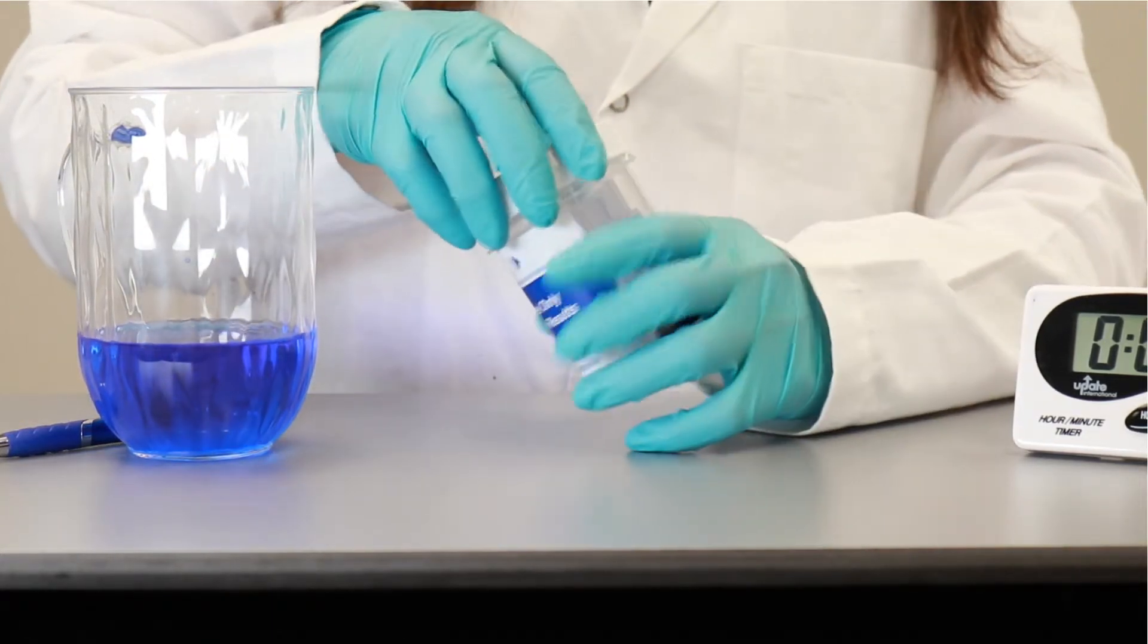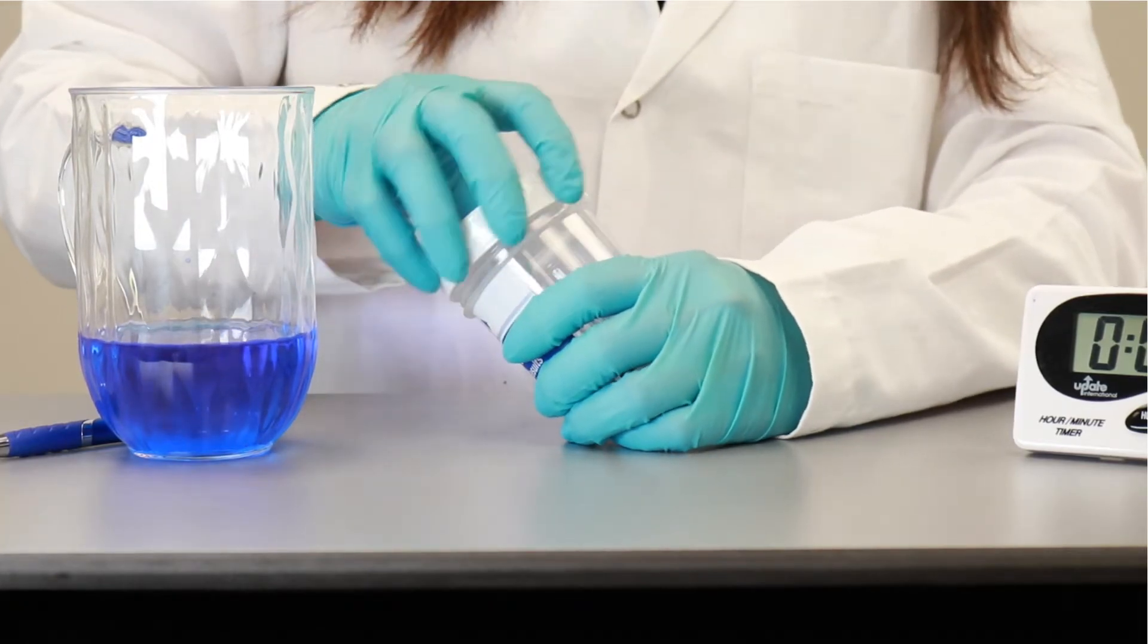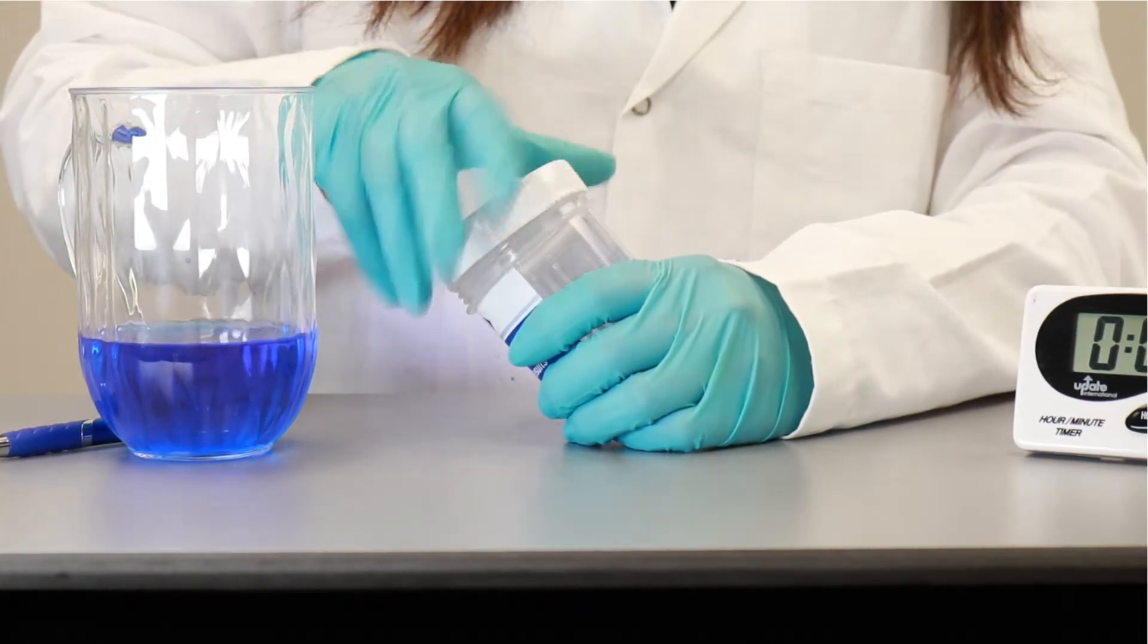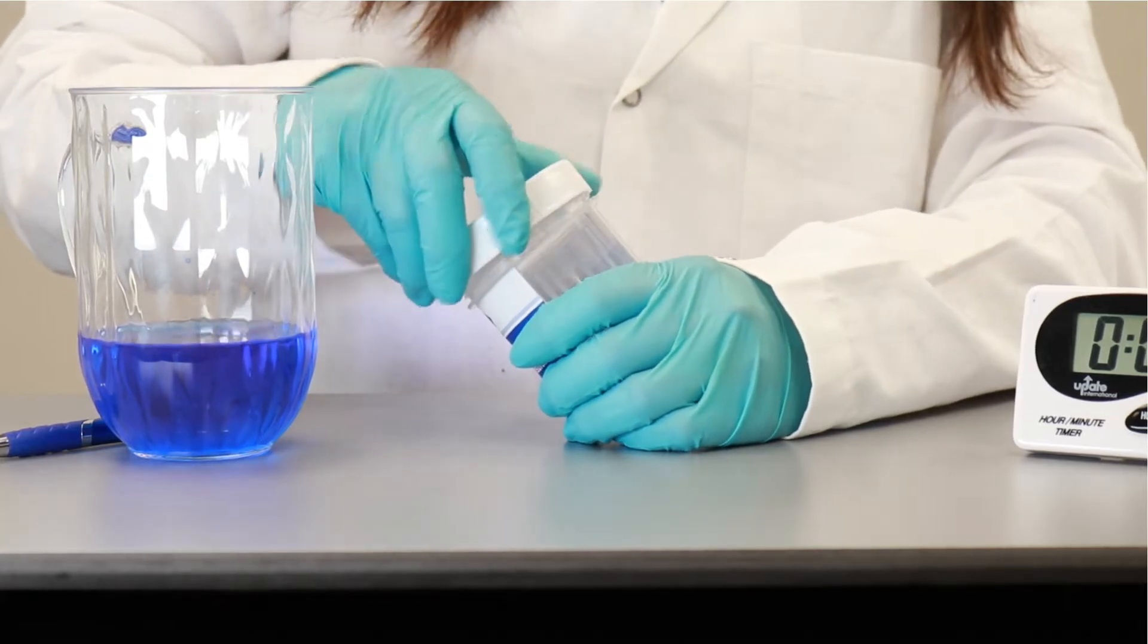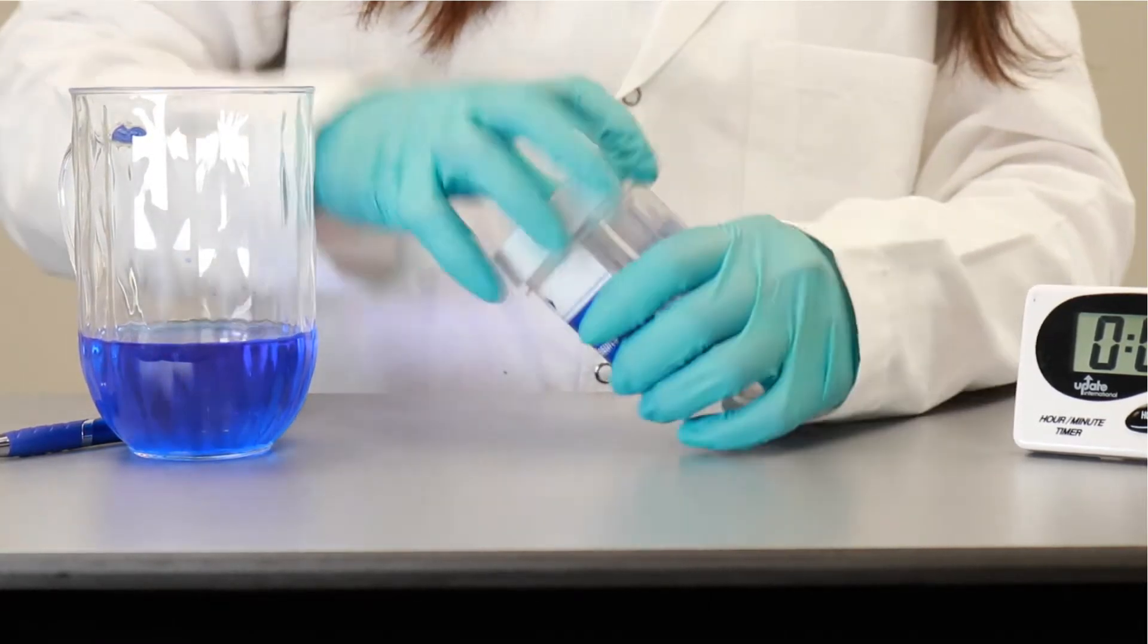Right here, you have this cup, which is really beautifully designed. It's a leak-proof mechanism. So if you notice here, there is a lock mechanism here that the lid is really nicely secured.